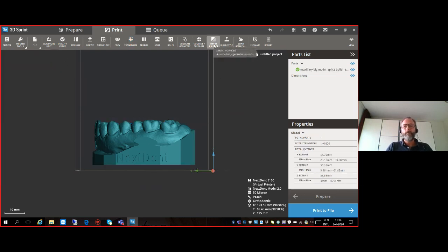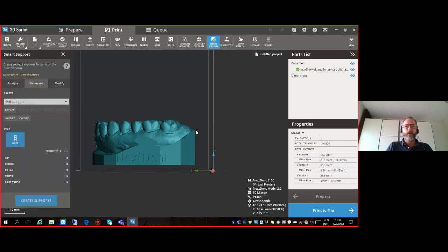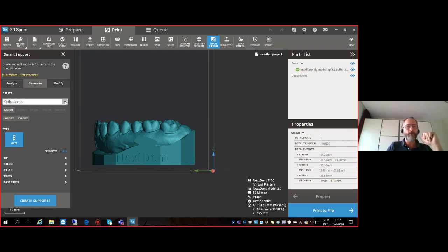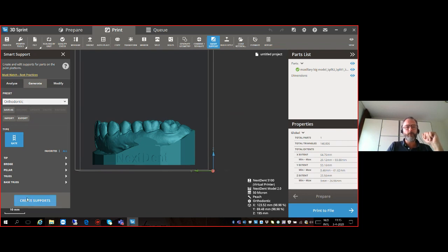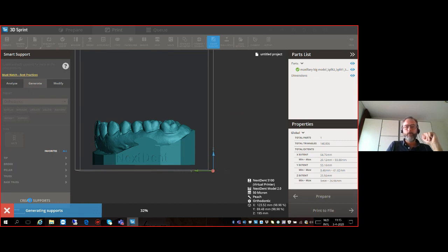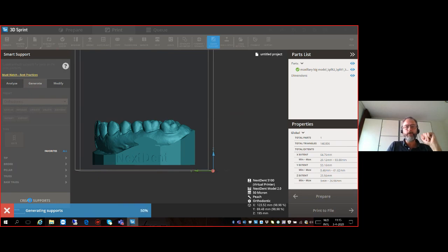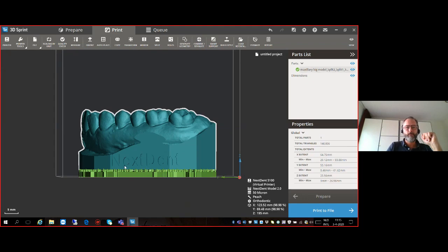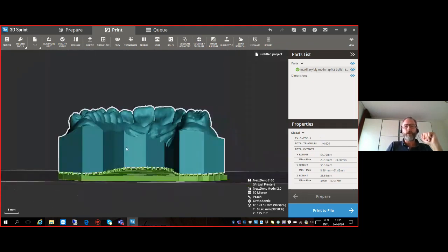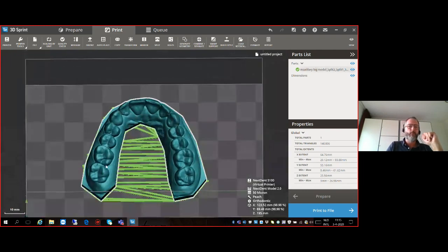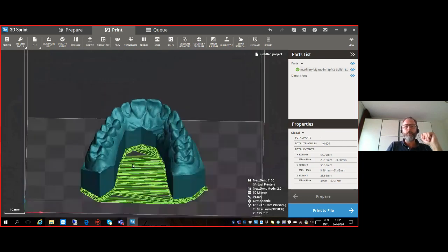A very nice and important feature is Smart Support. Many software packages create roughly the same supports, but in 3D Sprint, for each and every application, the 3D Systems engineers created special supports — so it's important to select the right supports. We selected the Orthodontic build style, so for supports we also select the Orthodontic support style. There's also Prosthodontic and Premium available. Select Orthodontic, create the supports, and the computer calculates how to place them and how many are needed. Here we have many supports placed under the model.